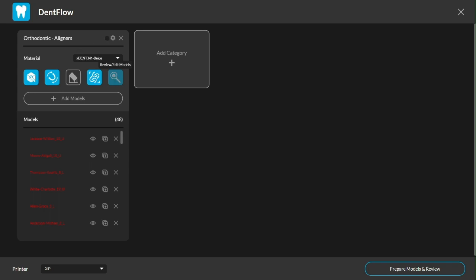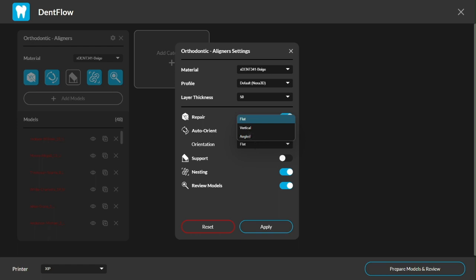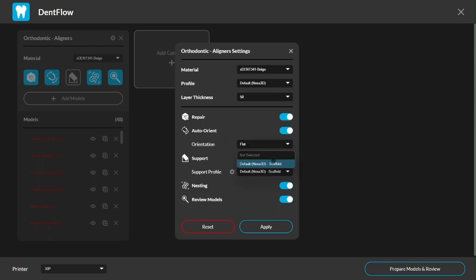Alright, let's click on the gear icon up here and jump into the advanced settings to see what parameters I can adjust on these bad boys. I can specify layer thickness, or I can dictate a specific angle to auto-orient the part to, and I can even choose my favorite support profile.